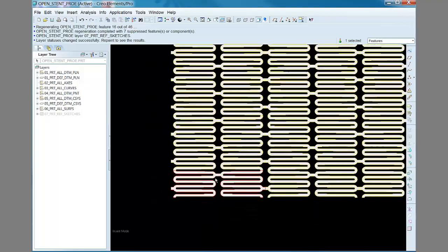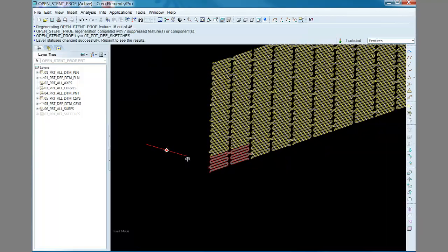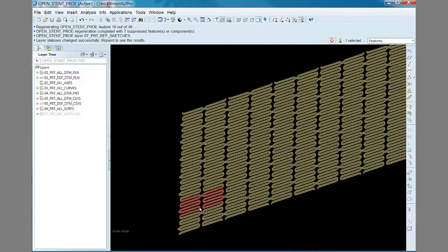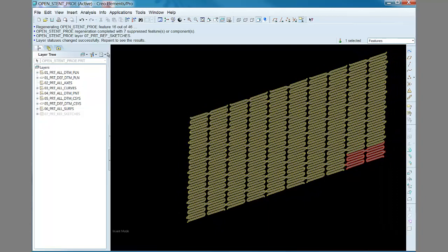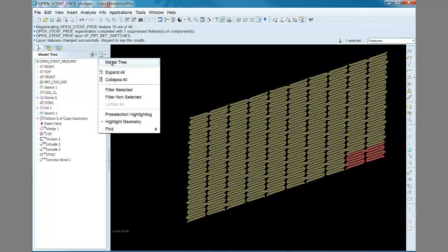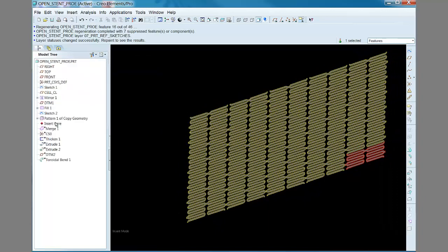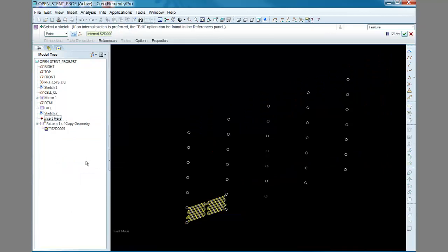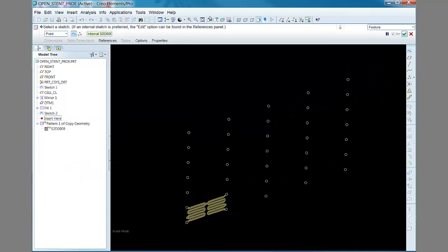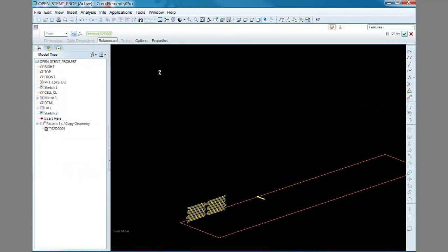Here you can see the individual members of the pattern in both the y and the x direction. I patterned the flat surface in the x and y directions using the point pattern option.